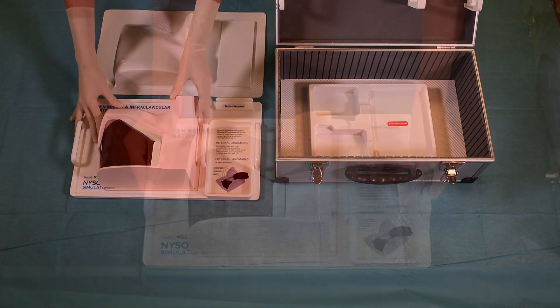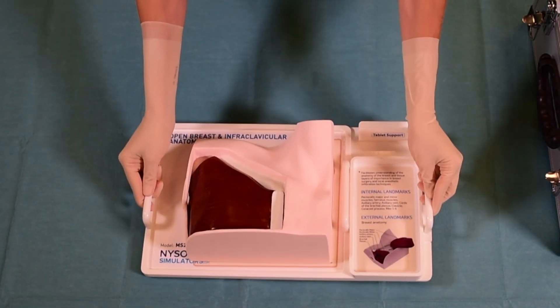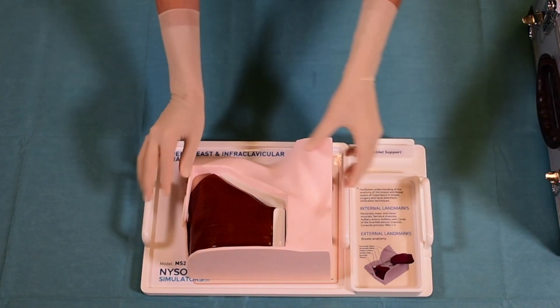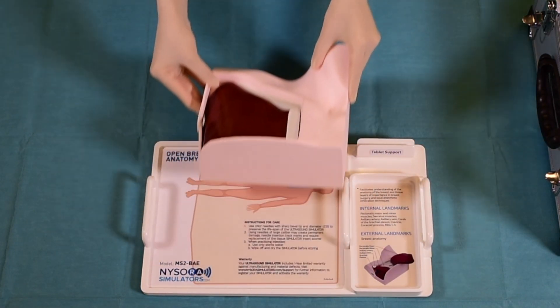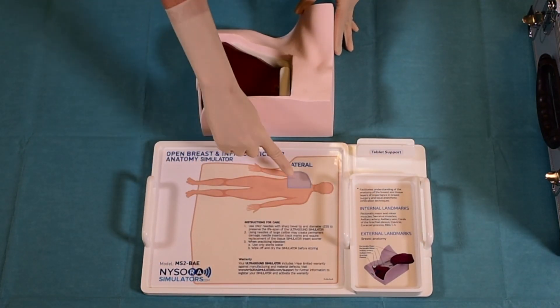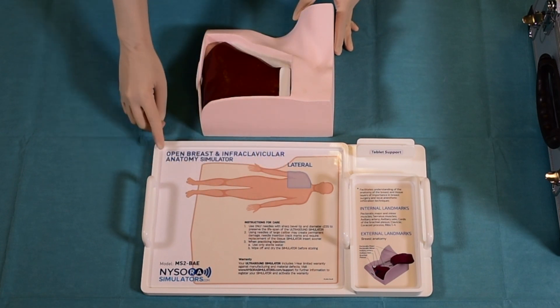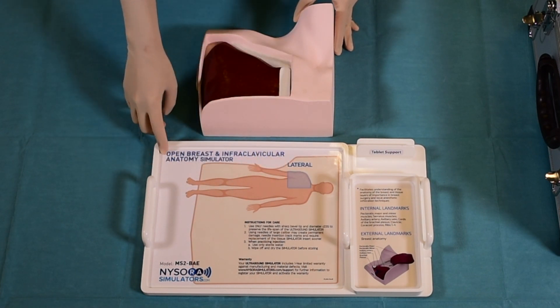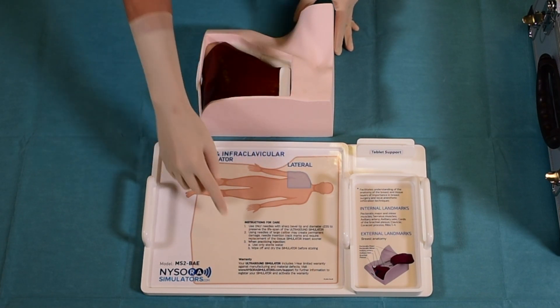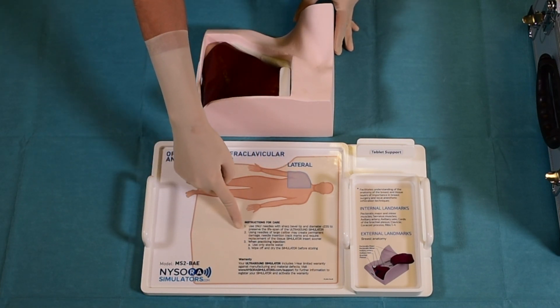On the custom tray, there are clear labels as to which part of the body the simulator belongs to. Clear instructions for use are also provided, and all anatomical landmarks and abbreviations that are featured are printed on the label that accompanies the tray.